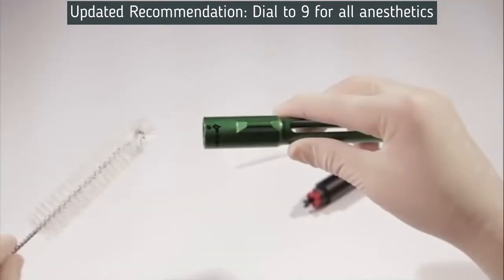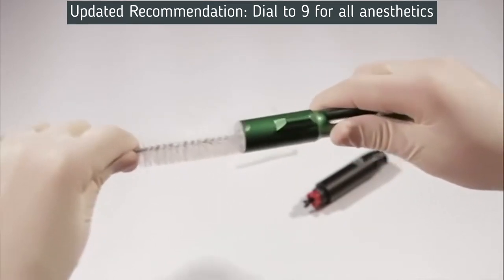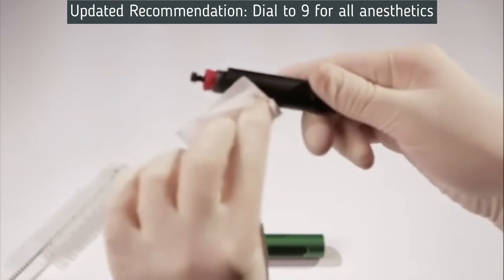The mixing pen should not be sterilized in the autoclave. Clean the inside of the pen's cartridge chamber with warm soap and water using a cleaning brush. A disinfectant wipe should be used to clean the pen body. Do not spray or immerse the pen in water or other solutions, as this may cause damage.